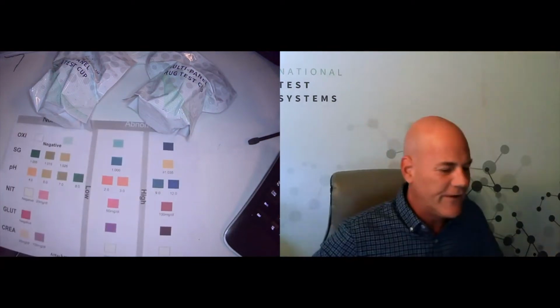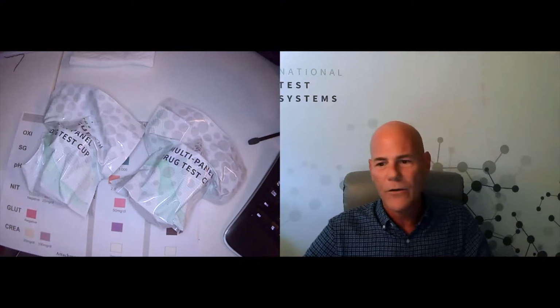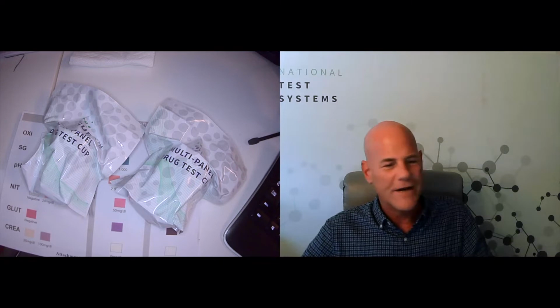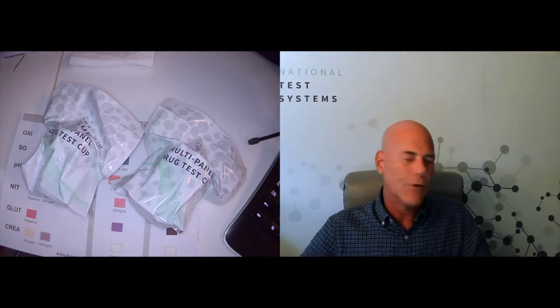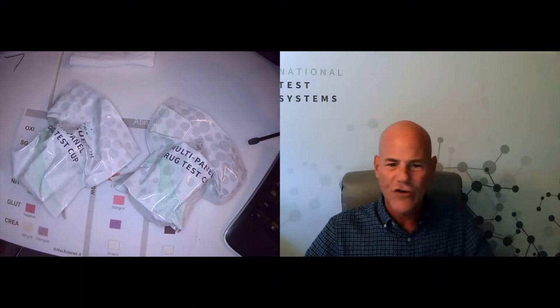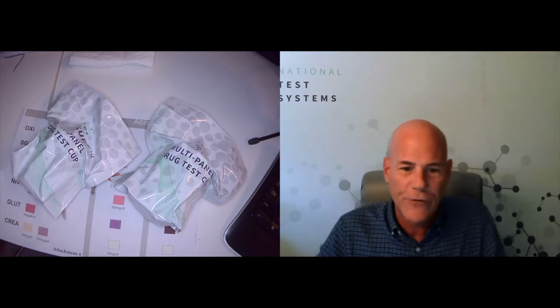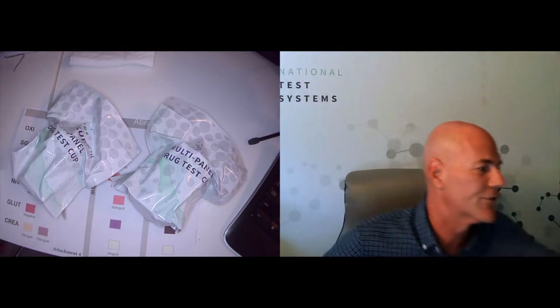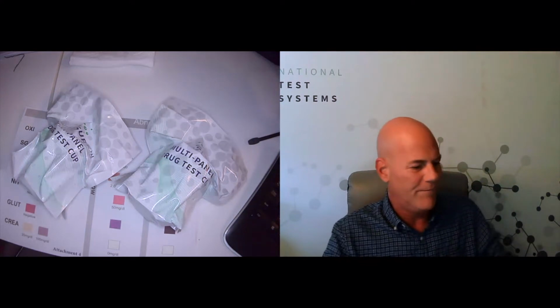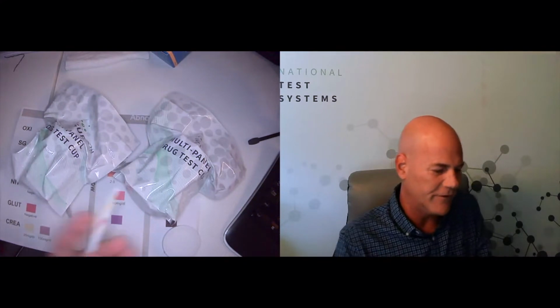Anyway, so what we're going to do today is I've got a couple of our cups here. This is also a little different when we did the live webinar on the 23rd. I used a separate adulteration strip, but after giving it more thought when it came time to record this, I thought most of you were using these cups, and it would make the most sense to show you how to read on these cups. Now, if you're using a different product to test for your adulterants, if you are using a separate adulteration strip, so let me get this without ruining my whole setup here. These are basically individual adulteration strips or specimen validity tests.